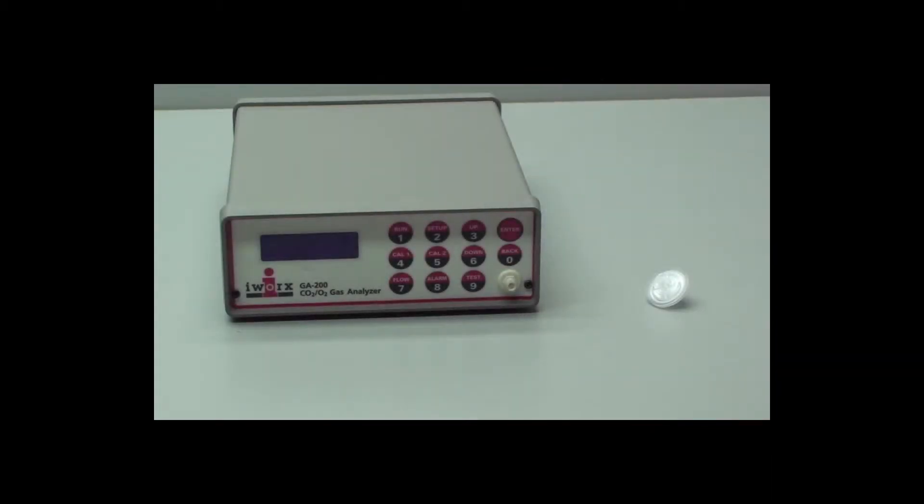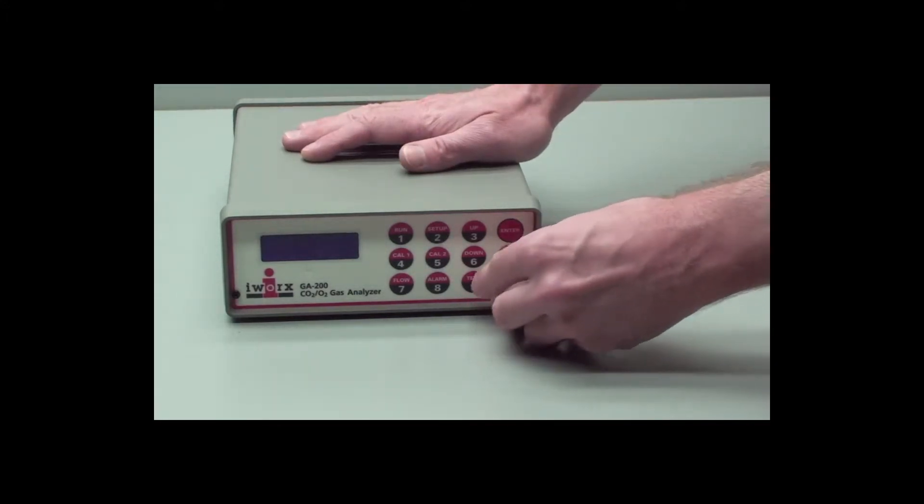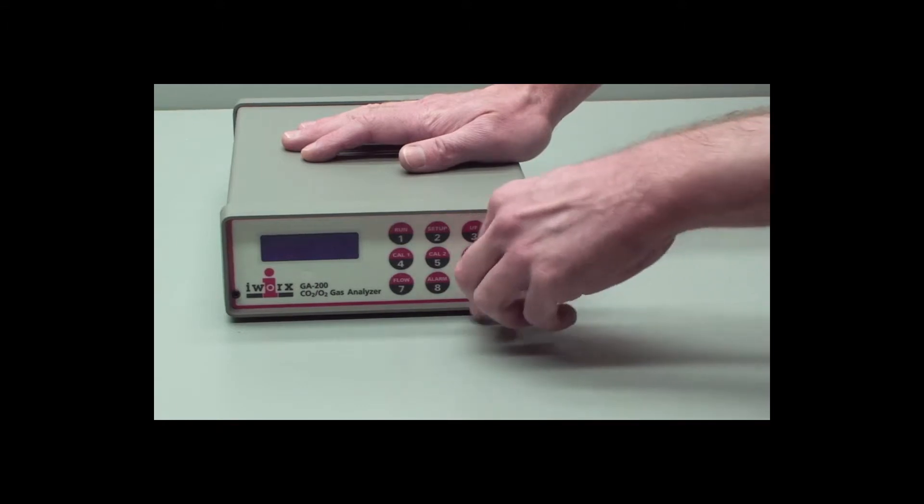Now take the filter, and the lower end goes to the front of the gas analyzer. Don't over tighten, snugly is fine.